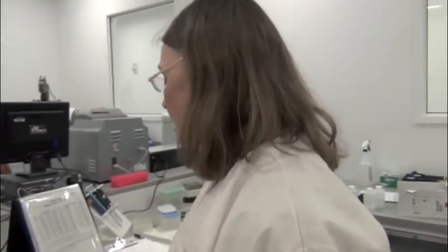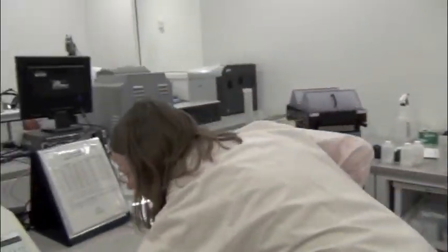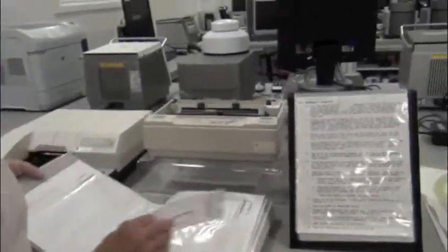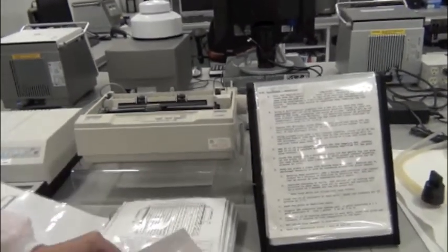So it's not totally hands-on, but it's on and off. Can you show me maybe a finished one and how you read it? Yes, I can. They have a little strip here which helps you to read it. You can see, if you look at these, let me take one out of here, so these are pretty nice.